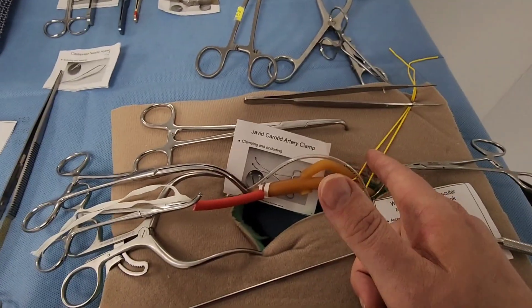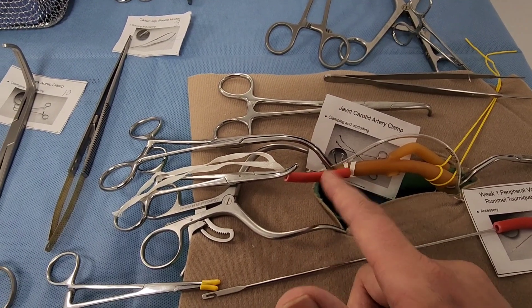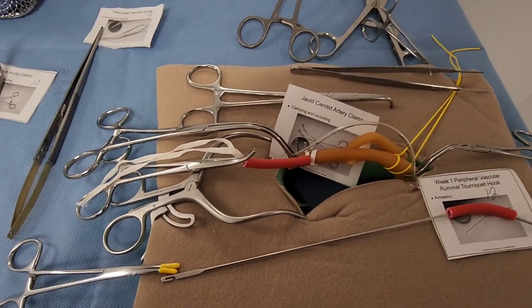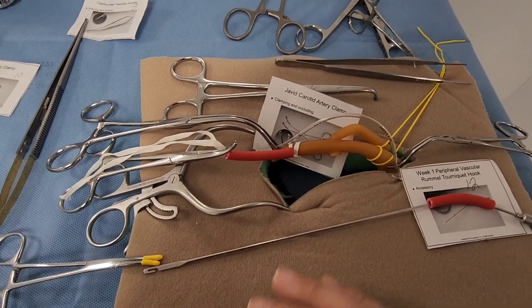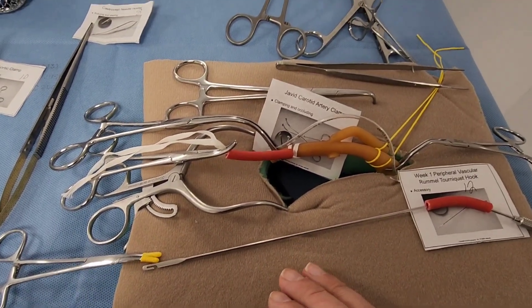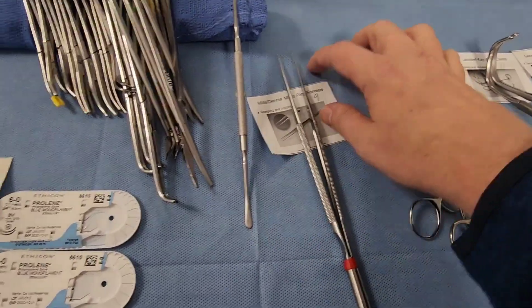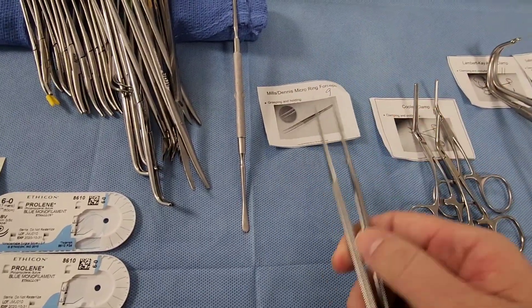There are many ways to control blood flow: Rumel tourniquet, Rumel hook, vessel loops, or umbilical tape — these are all accountable items. Vessel loops, umbilical tape, and even these rubber catheter pieces need to be counted. If you cut four or five pieces, you count that many pieces.